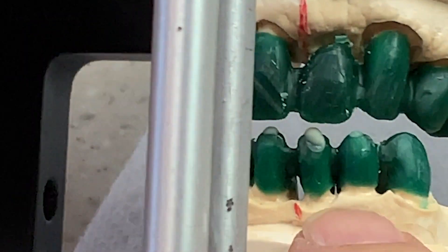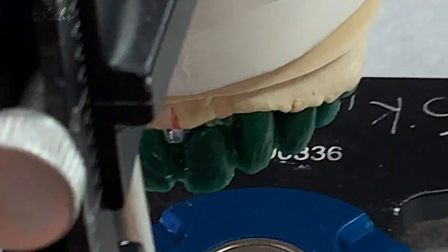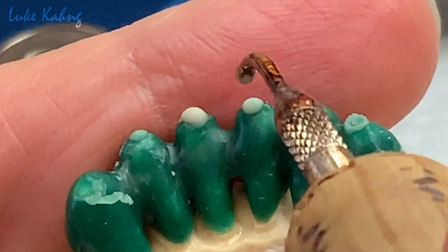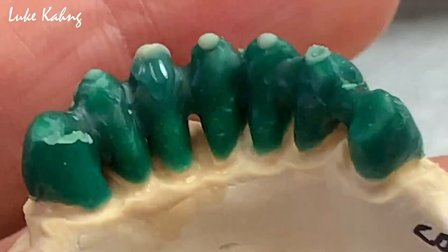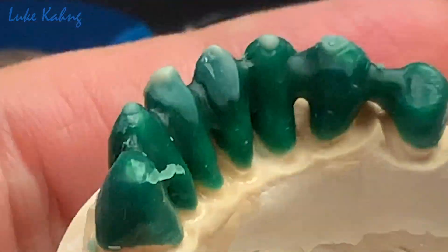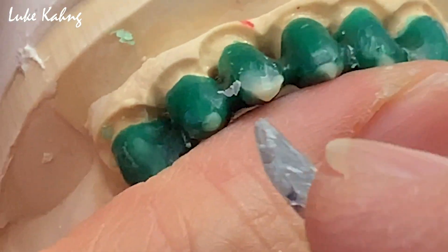Once you set up this, I'm trying to reduce as much as possible, thin as possible. Then I make the alignment. A little bit here — nice, that's good. Same thing on the other side. You have to make it thin as possible — the facial. I would say 5 tenths of a millimeter. This doesn't matter much.